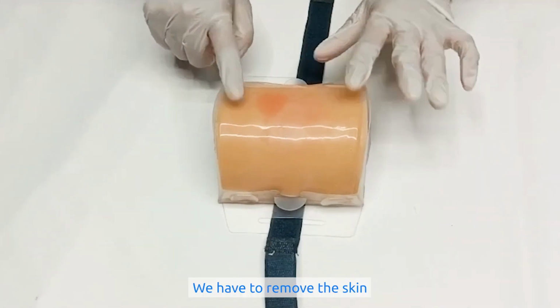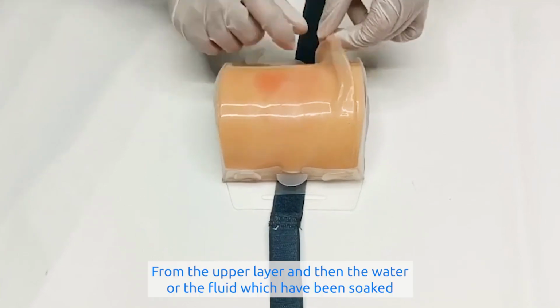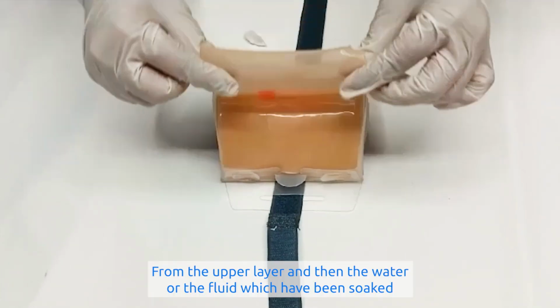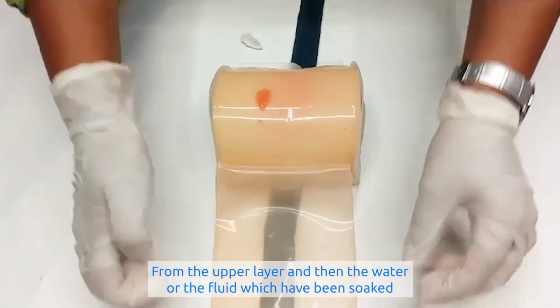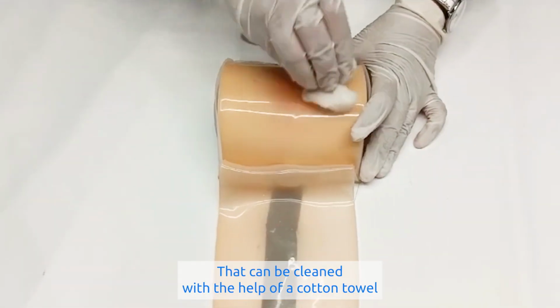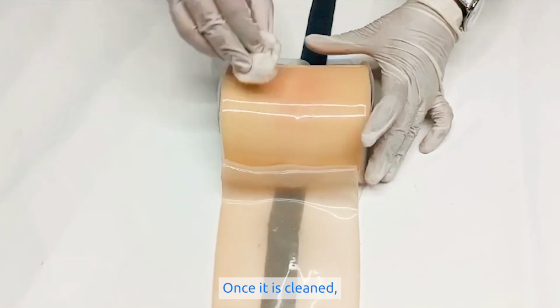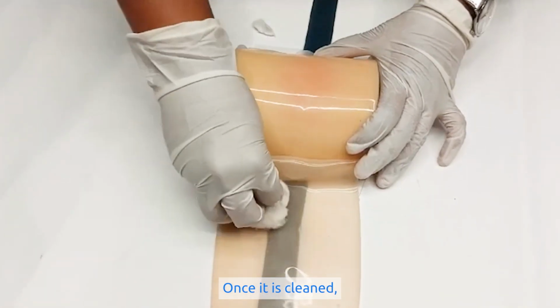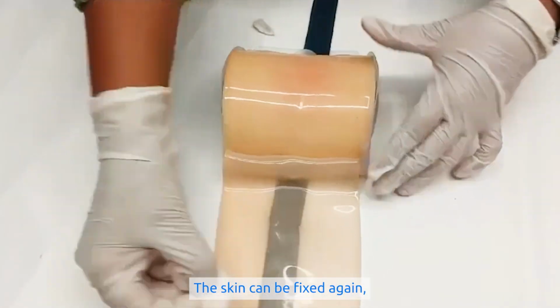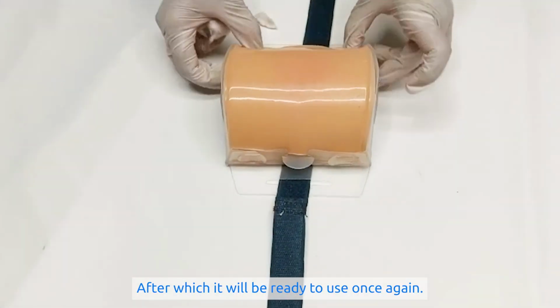To clean the injection task trainer, we have to remove the skin from the upper layer, and then the water or the fluid which has soaked in can be cleaned with the help of a cotton towel or a cotton cloth. Once it is cleaned, the skin can be fixed again, after which it will be ready to use once again.